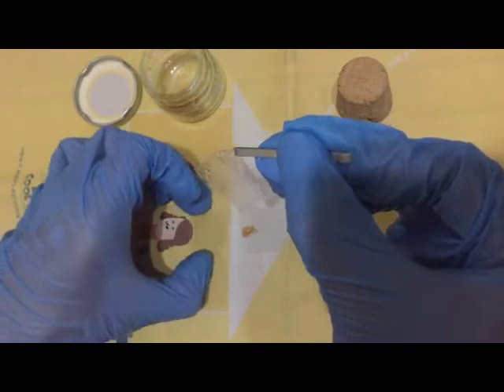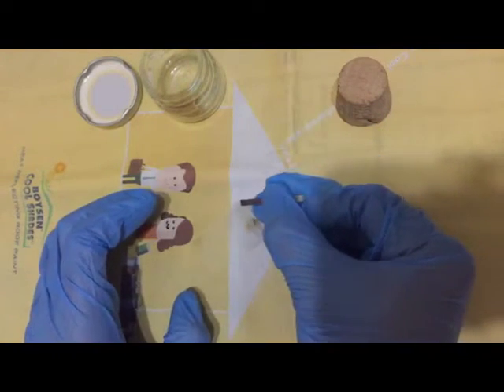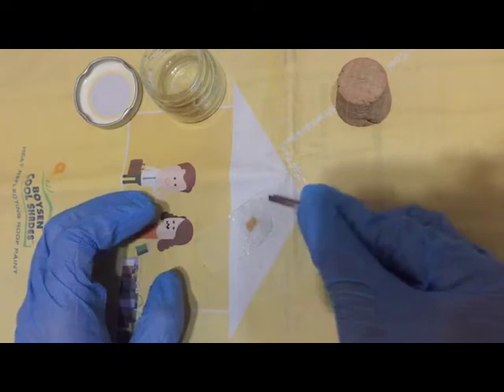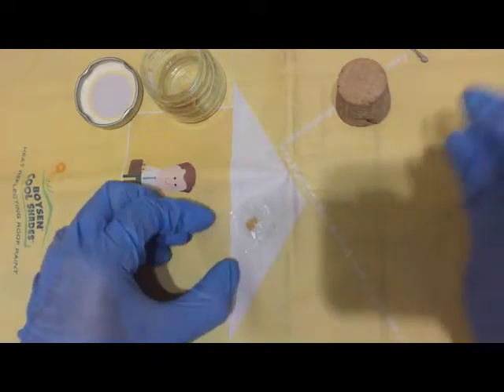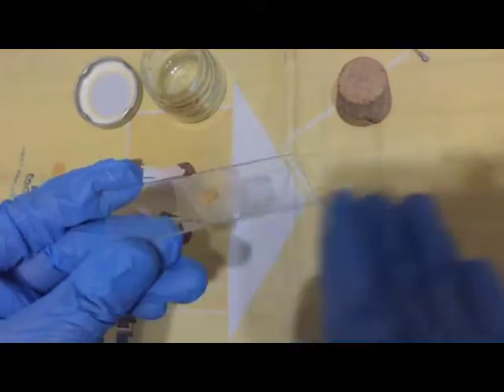Gently place them over the stool. Make sure that the stool material lies in the center of your makeshift cover slip or your cellophane slip. As you can notice here, the cellophane is not flat on the glass slide.